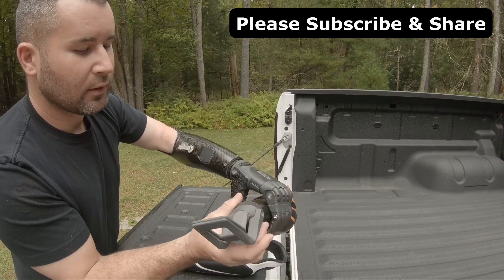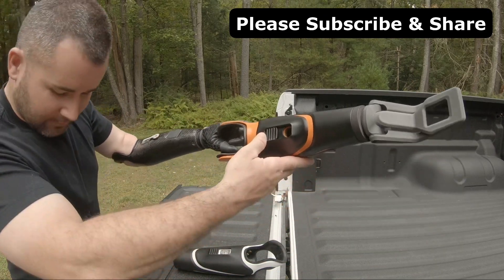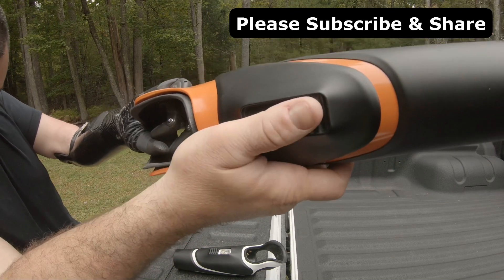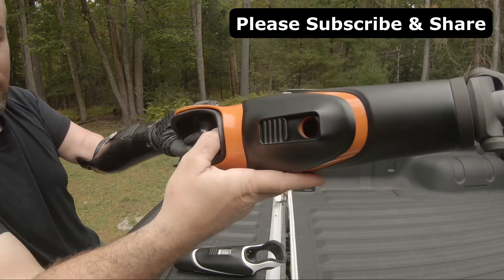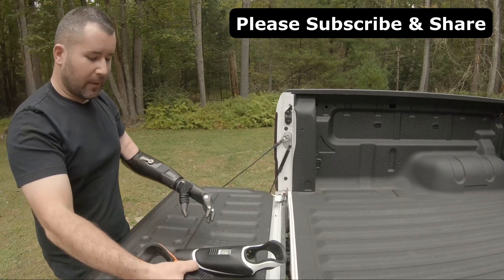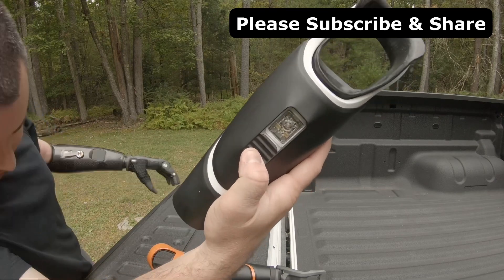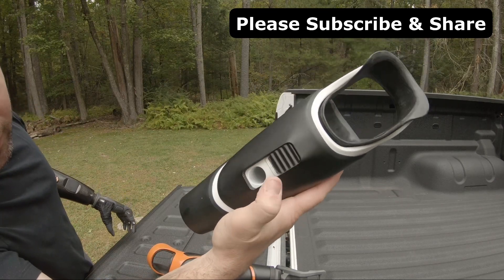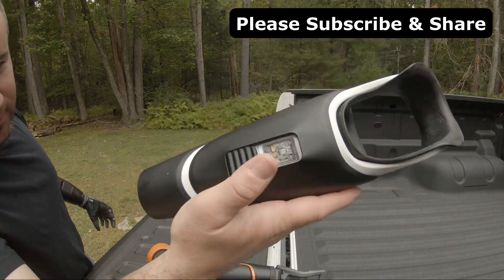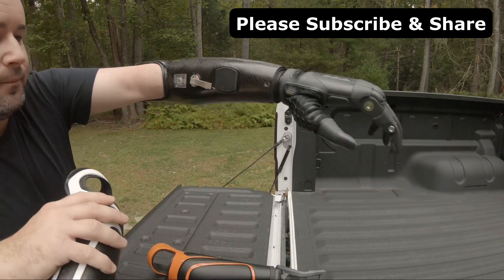Quarter turn, pop it off. Another thing I really like about this arm is this little sliding door — may not seem like much — just slide that and it looks finished. Open it and that's your donning sleeve to pull through. Both of them have it. Here's your on/off switch on the system, the software they're using for this arm — cover it right up, pull through, pull the arm on, cover up the hole. Just a neat little touch — a lot of times it's just a hole here, or you have the one-way check valve like I have on this arm.